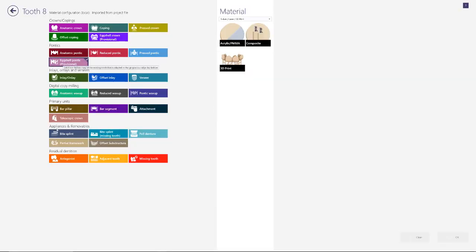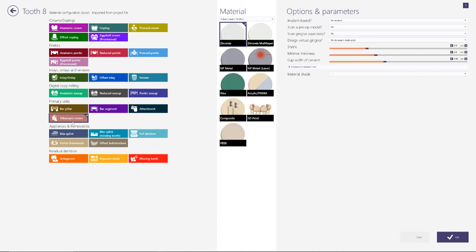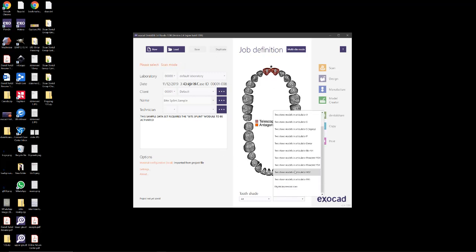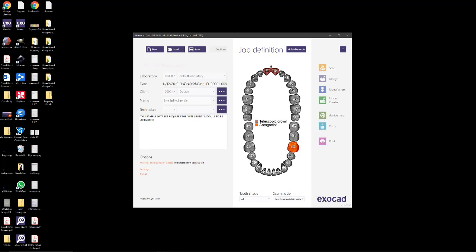So I'm going to design telescopics on the centrals. It doesn't matter what type of material you select here or any of the other parameters. We'll select the two centrals, select our correct occlusion, just so we can save and then move on to the design.